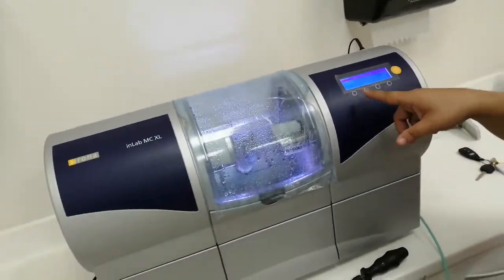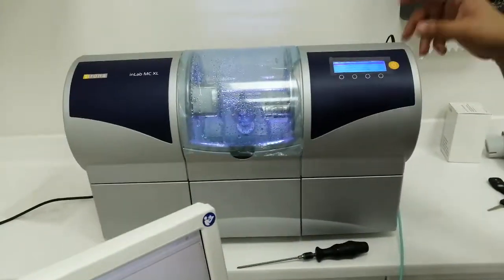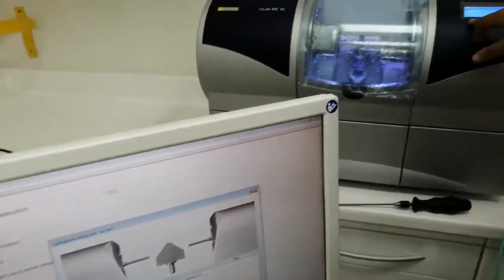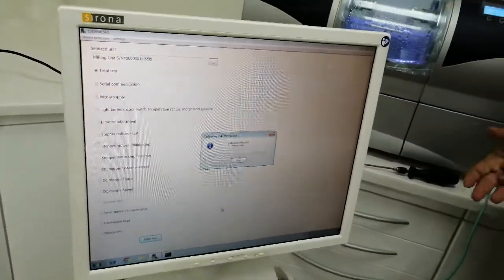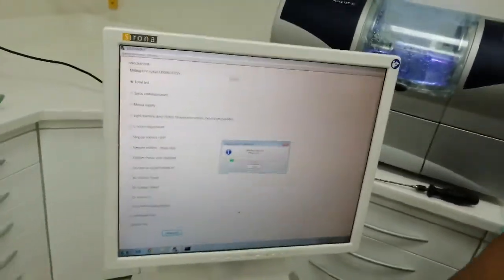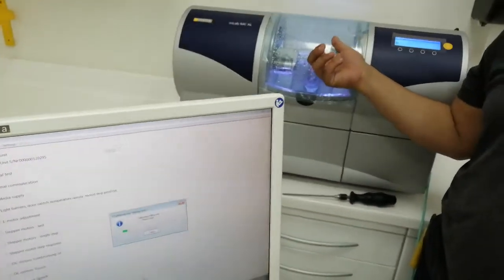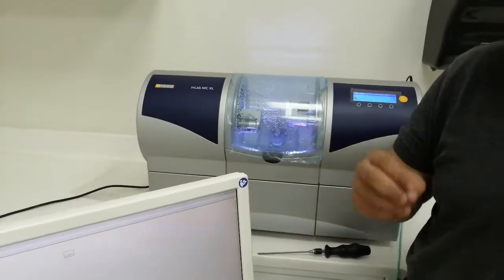This method is very important because after one or ten times, cracking from here can break it. Please don't turn it in the wrong position. This is the recommendation: close carefully and press start here or from the computer. Calibration will take about 30 minutes, 20 to 30 minutes. If this unit was calibrated in the factory, it will take less time.